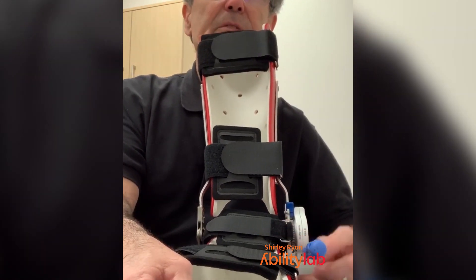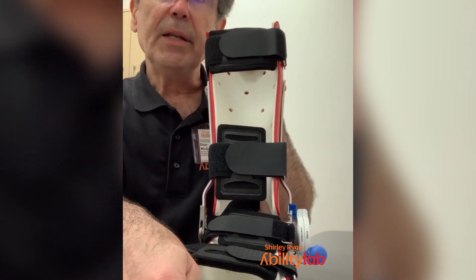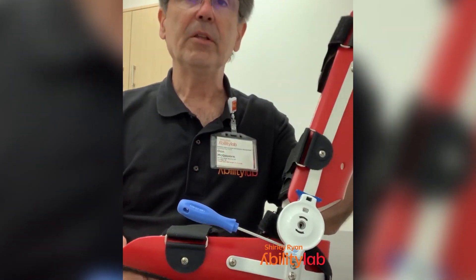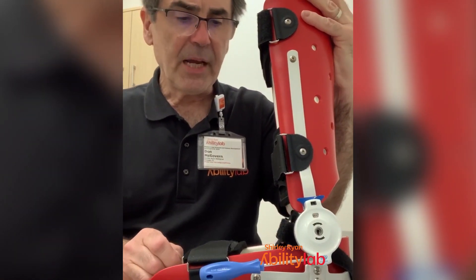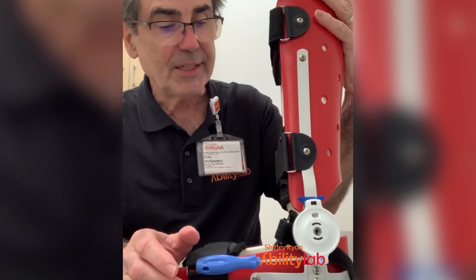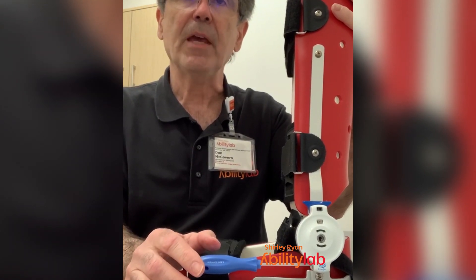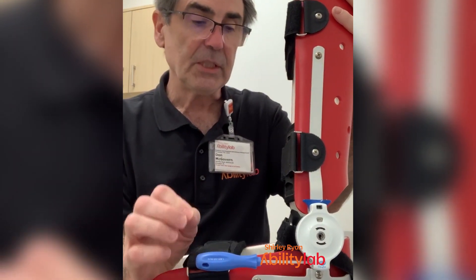If you have one with a tailor flange, which comes up over this way, that is often red too. The redness we expect, and we also expect it to go away in about 20 to 30 minutes. If you take it off and there are red marks, be patient and look for the 20 to 30 minutes. Keep in mind that all of us humans are different — depending on your type of skin, some people's skin is really sensitive to pressure, and other people's skin, it doesn't really matter. You're the expert on yourself, but cautiously go forward.